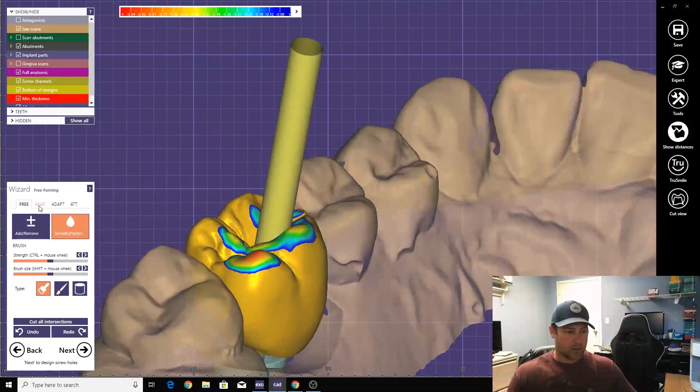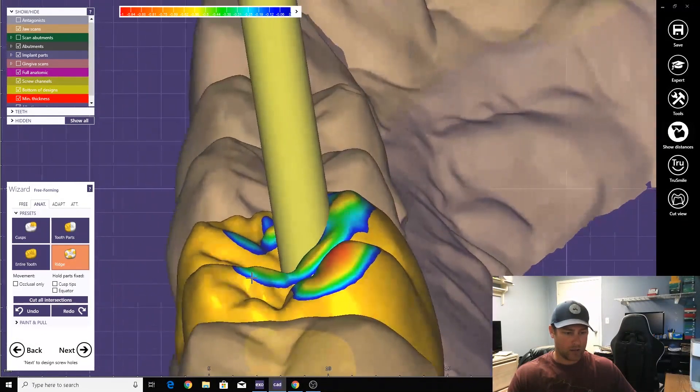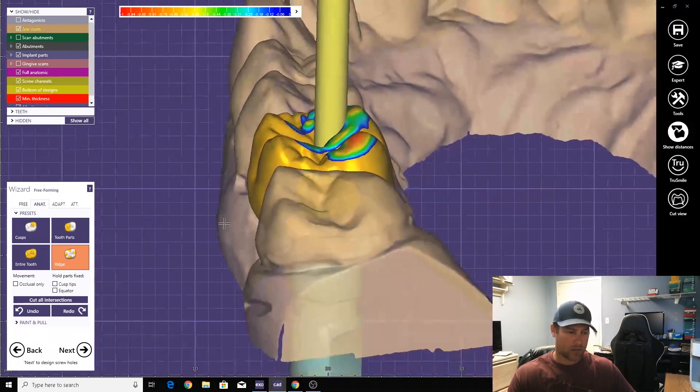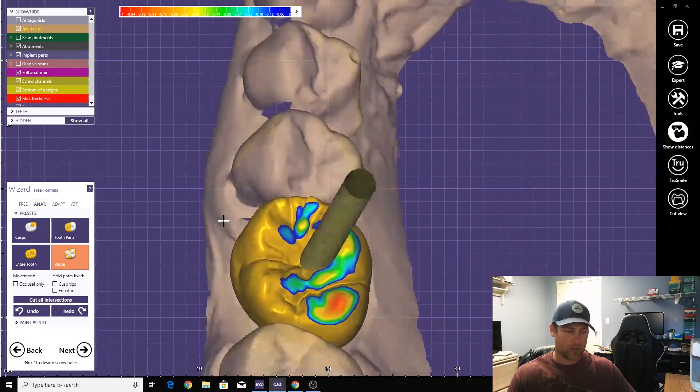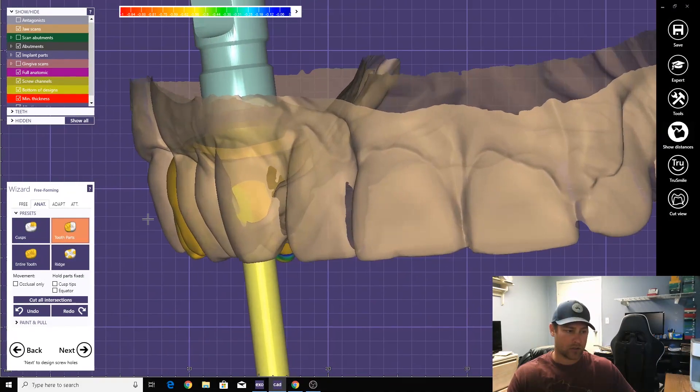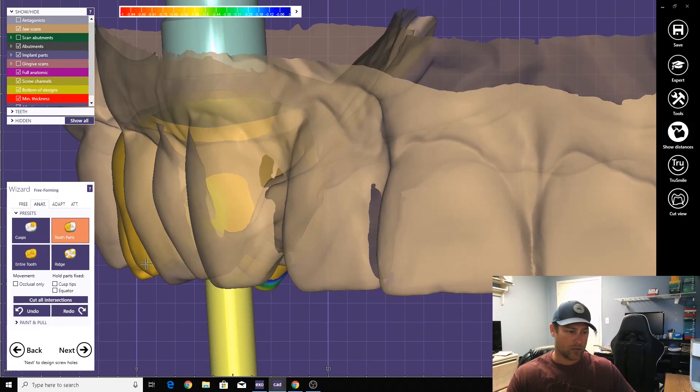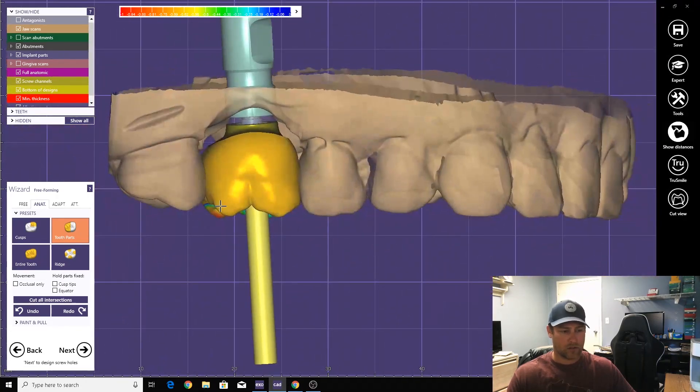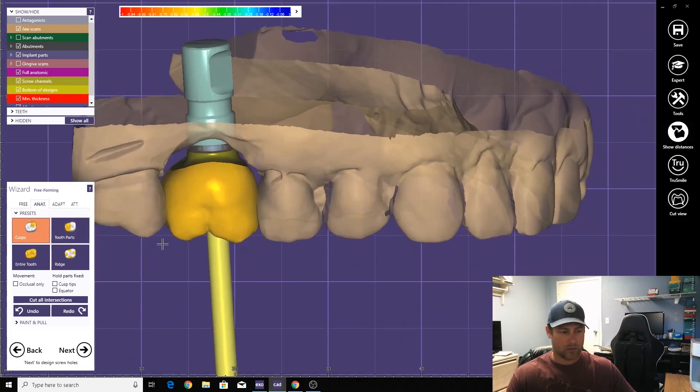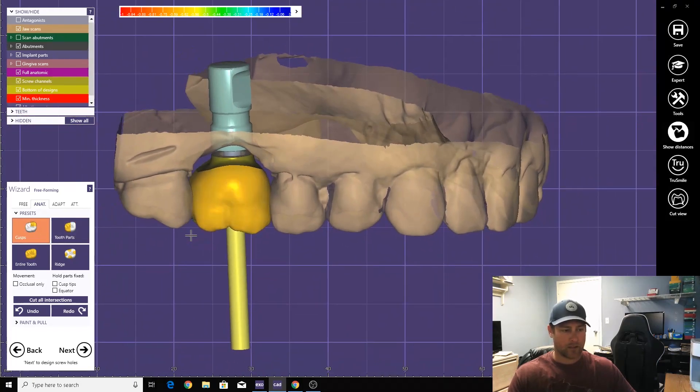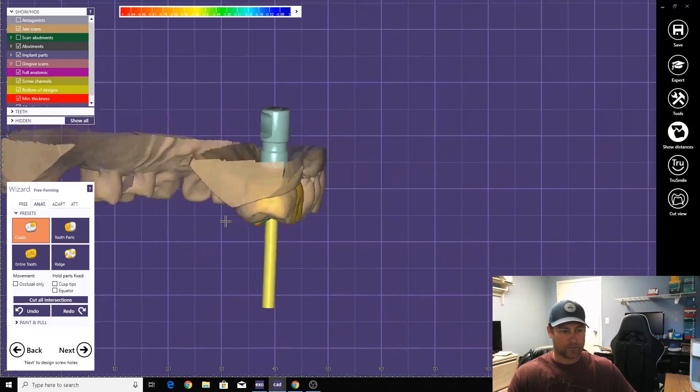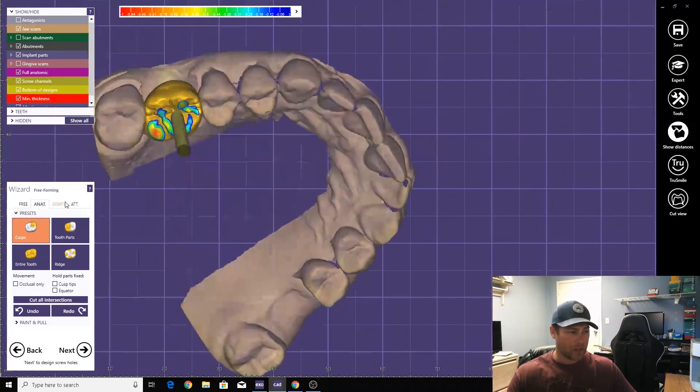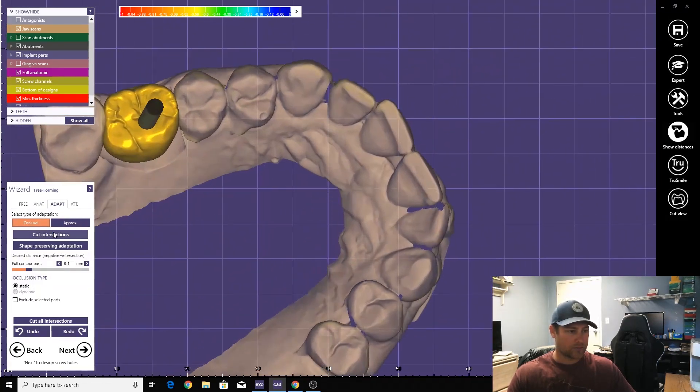Okay, let's add his contact a little bit, a little bit more. Okay, add a little bit. All right, now we can go ahead and cut this. Cut the intersection. Let's just make sure, let's cut this out a little too far. All right, cusp tips look good, a little too sharp.